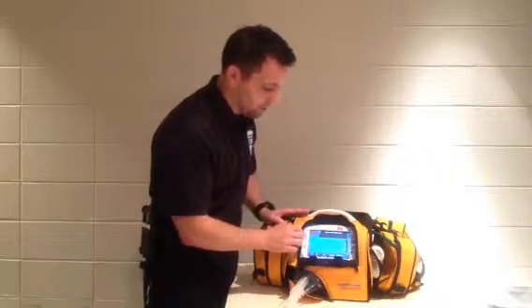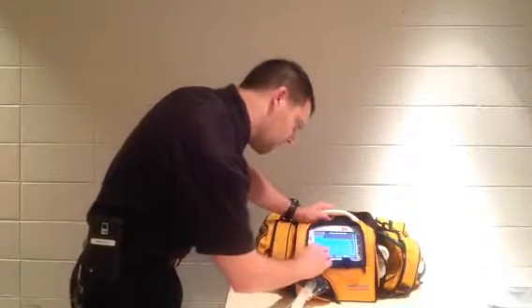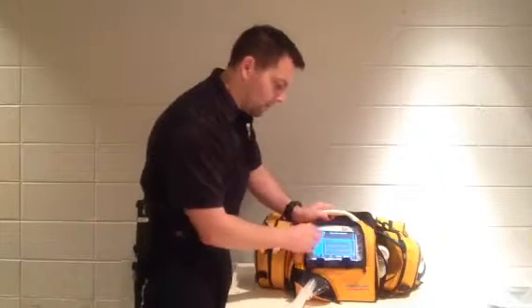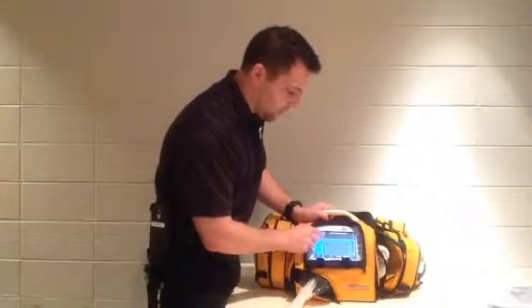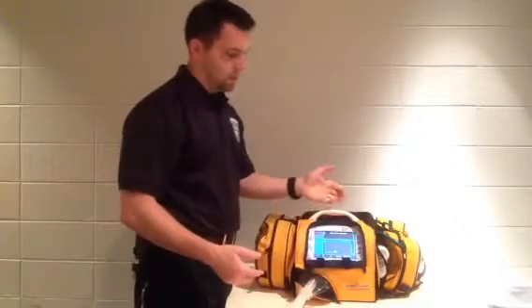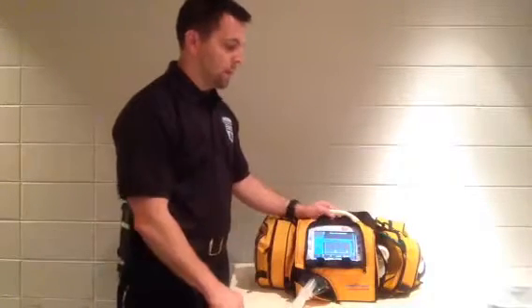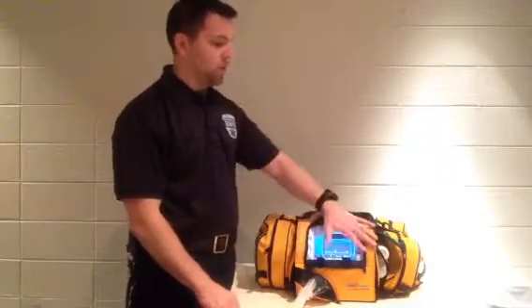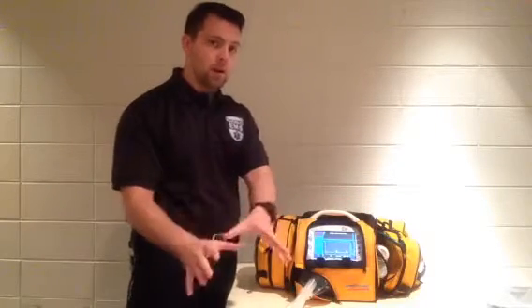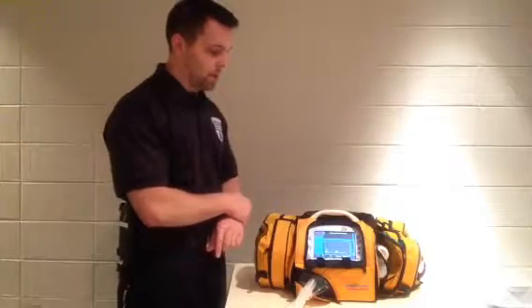We can come here to the More screen, and it's going to show me an option for the waves down here. This is where I usually like to monitor my patient. It's got my 3 choices of waves, and I usually run it right here on the single pressure wave. And that way, visually, I can simply just watch the flow and the pattern of my patient. Now, between watching my pressure waves here, having my alarms available to me, and having end tidal running on my cardiac monitor, I've got a pretty good comprehensive view of what's happening with my patient.